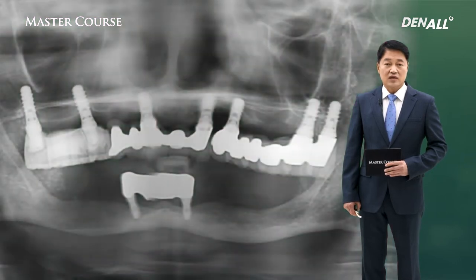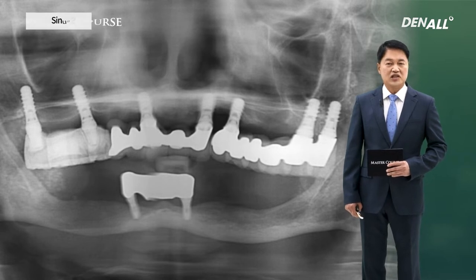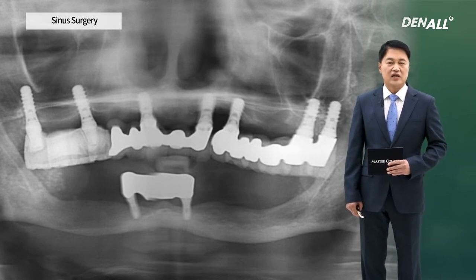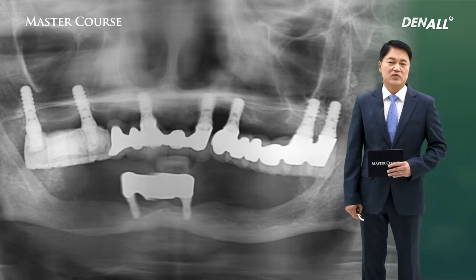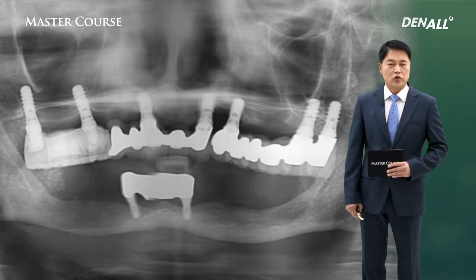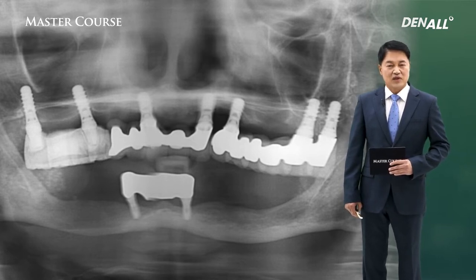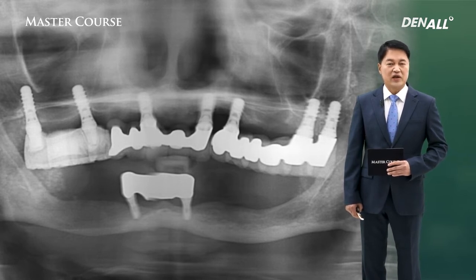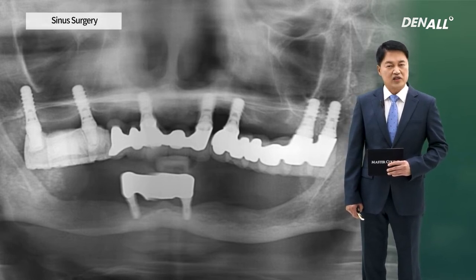Regarding sinus surgery, there is a very important message in this image. This is what I first took when the patient came in. The patient received implants from a different dental clinic. In the upper, there is bone resorption overall and implants were placed. Because there is the inferior alveolar nerve, it was difficult to place the implant, so in the anterior, two implants were placed and an overdenture was done.